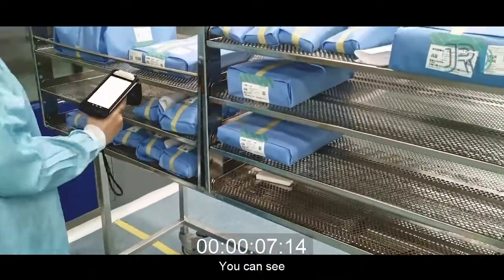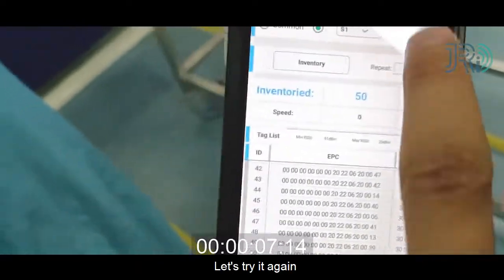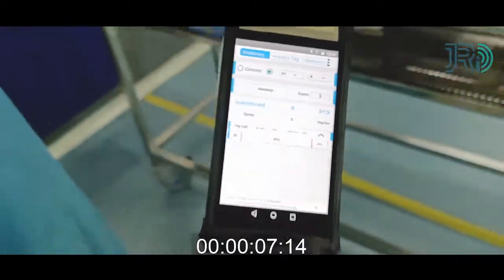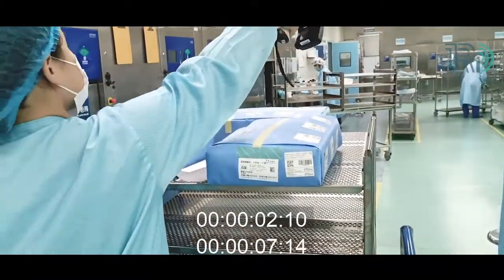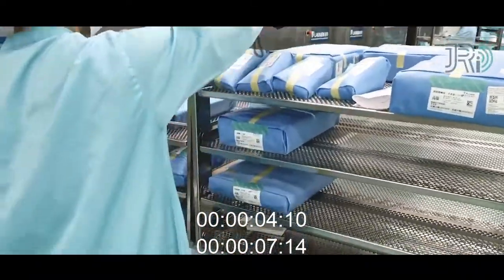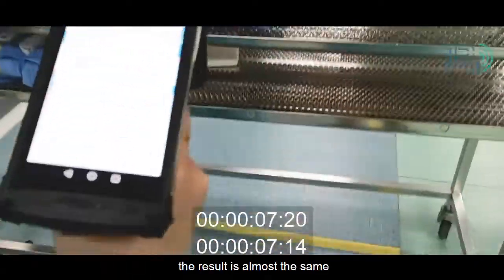You can see, it takes 7 seconds to read 50 tags. Let's try it again. The results are almost the same.